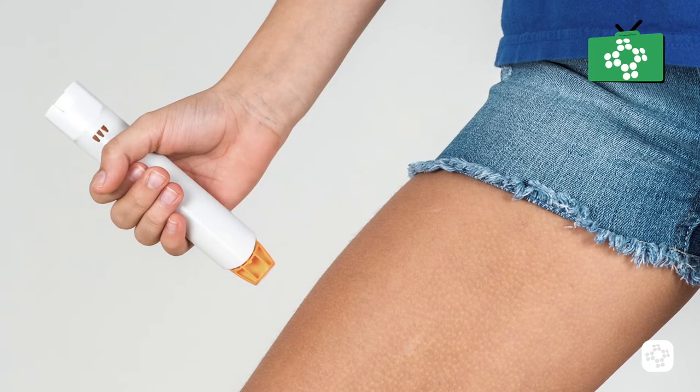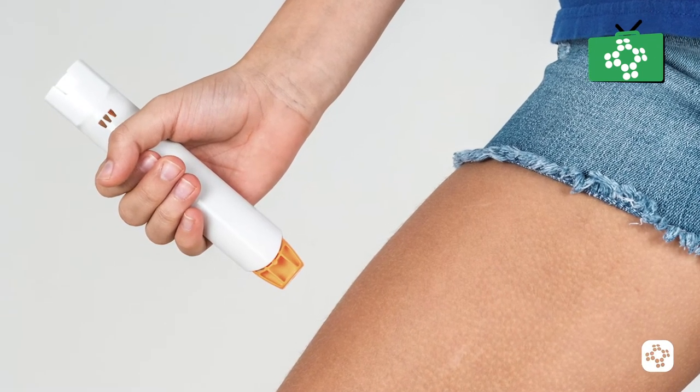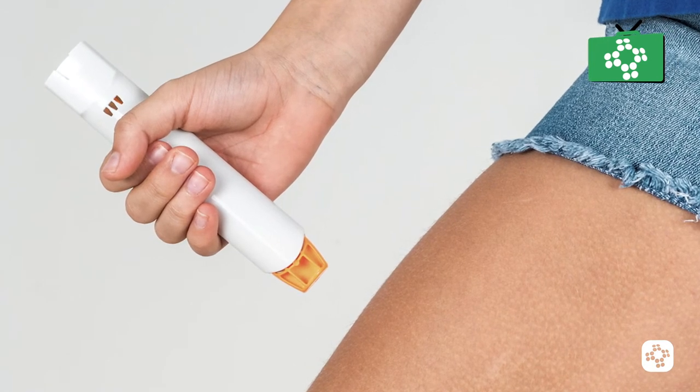If you or the patient has delivered one autoinjector and they are feeling worse or certainly no better at all, then it may be that you need to administer a second dose between 5 and 15 minutes after the first.